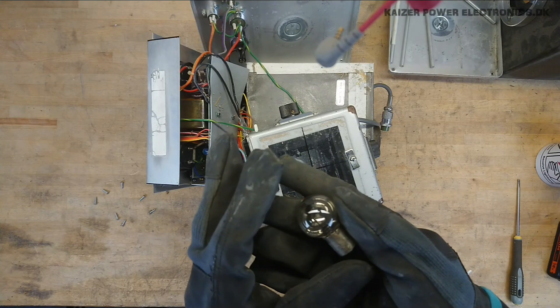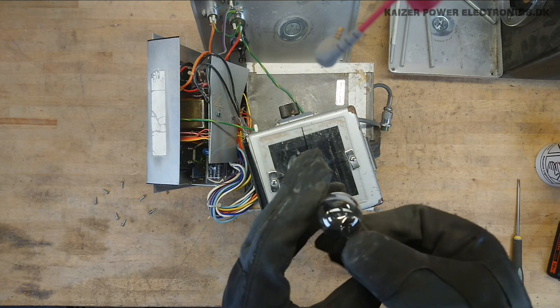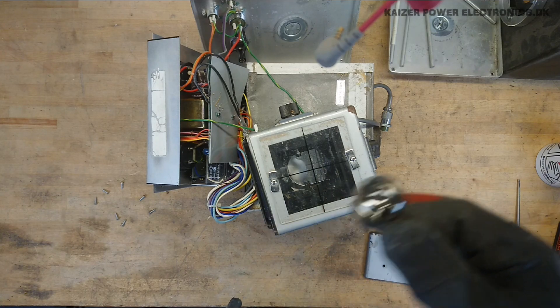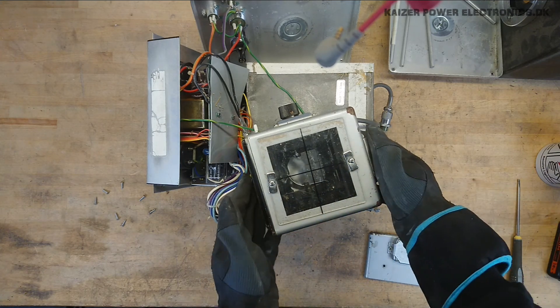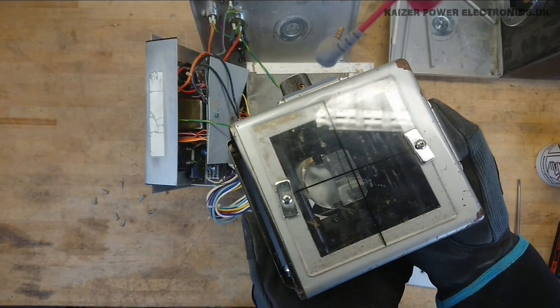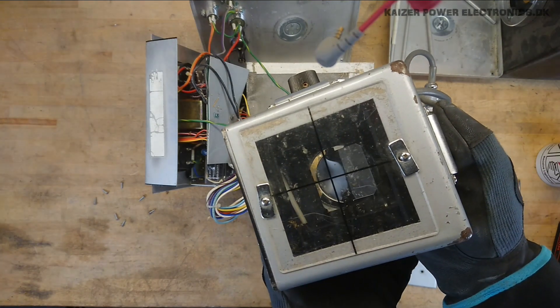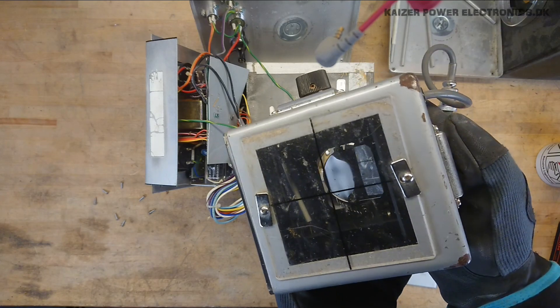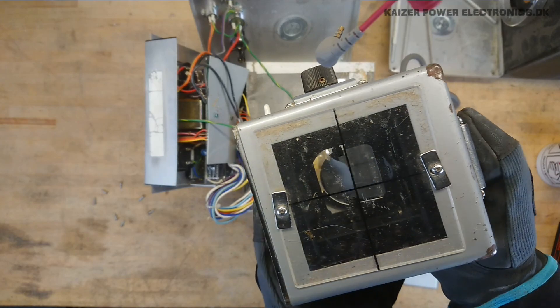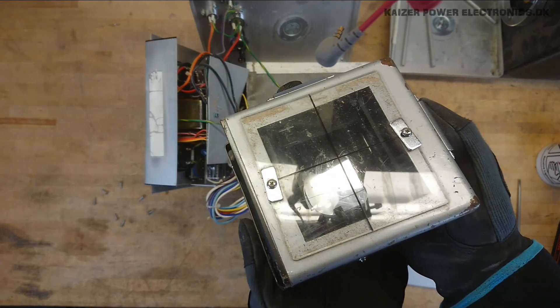Inside the collimator there was this little 12V 40W focus light, with a silver screen on one part to direct the light. The light is then directed into a small mirror that can be seen at the bottom here. You can see it's a complete mirror surface down there.